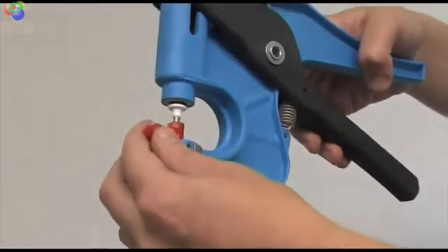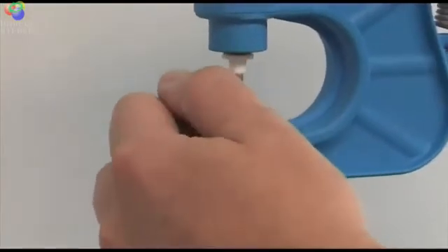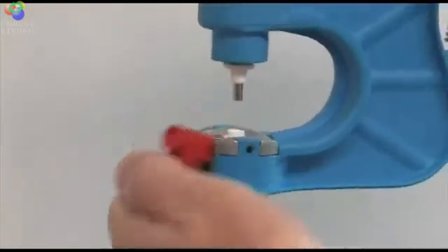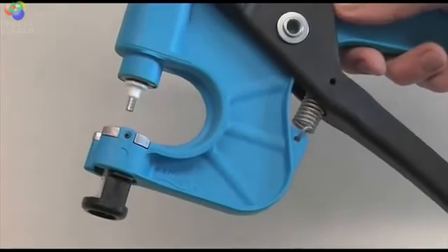Position the red clip with its ears facing outwards and then roll it off using the thumb and down with pressure. The applicator gun is now loaded and ready to take a sample.